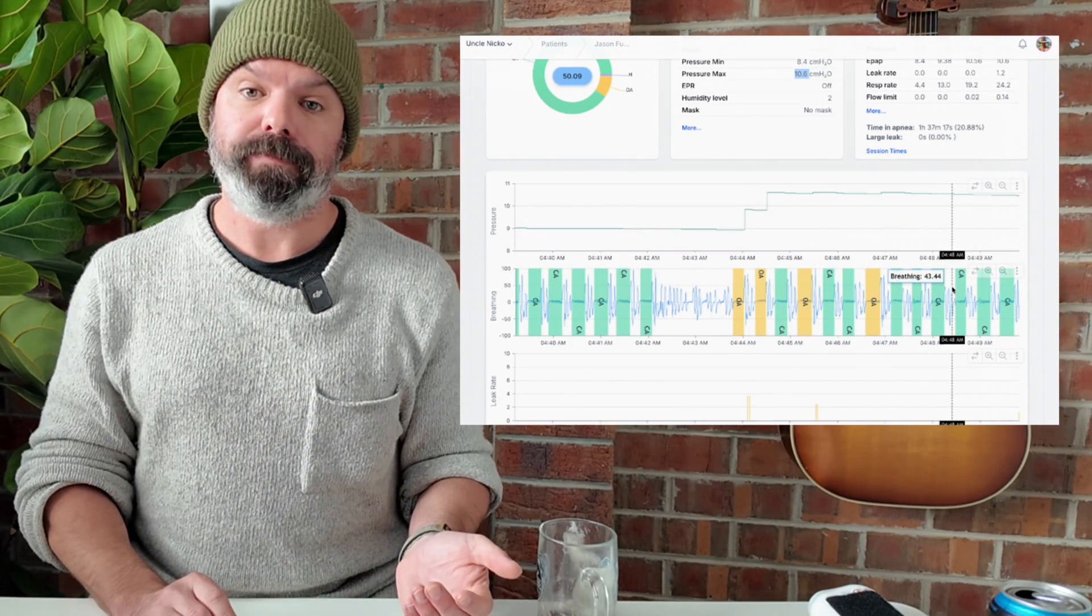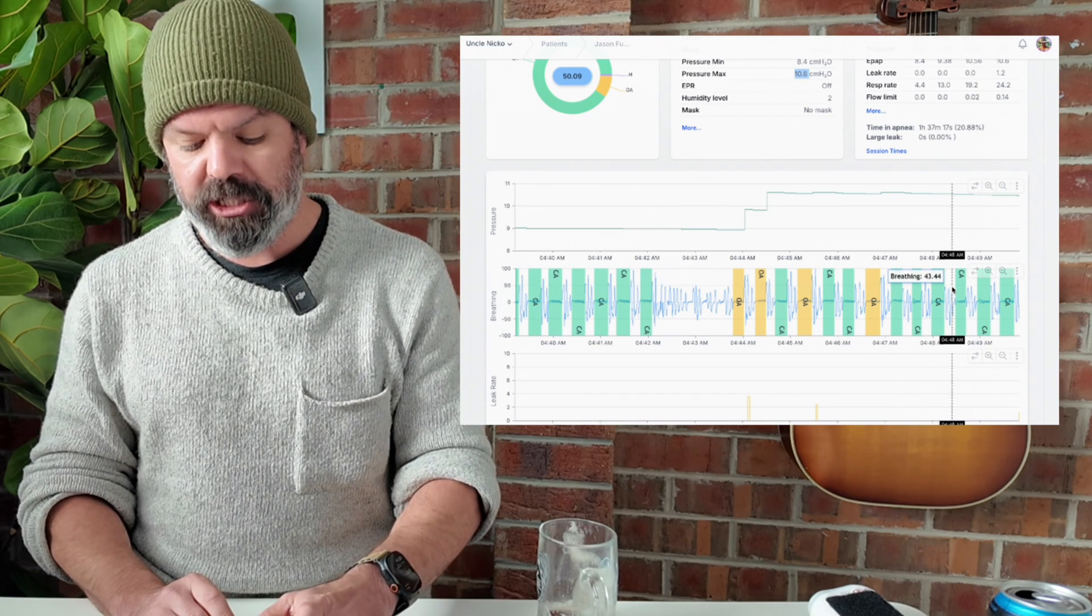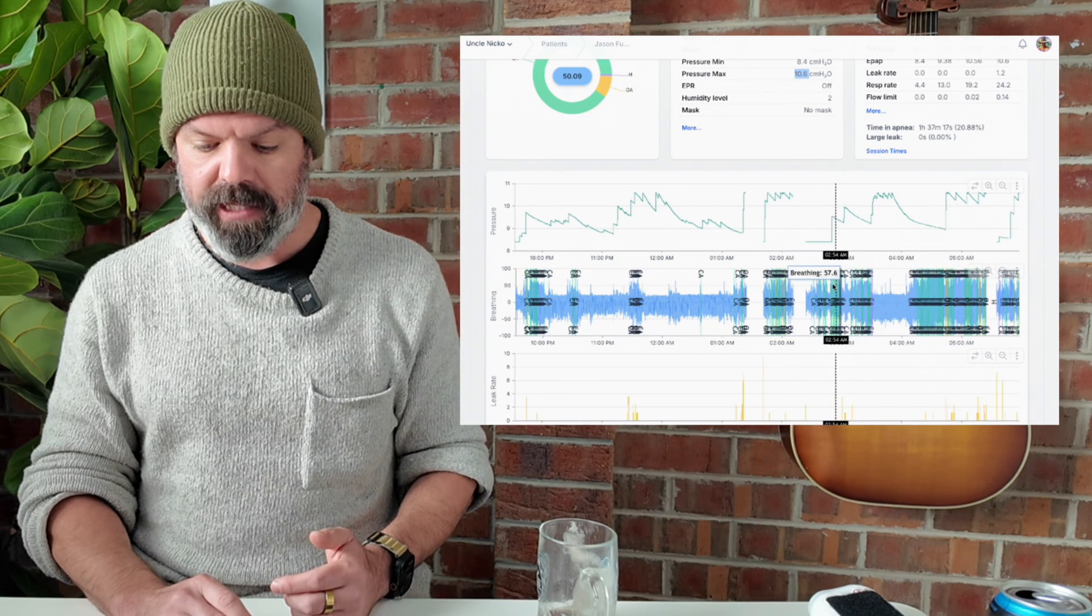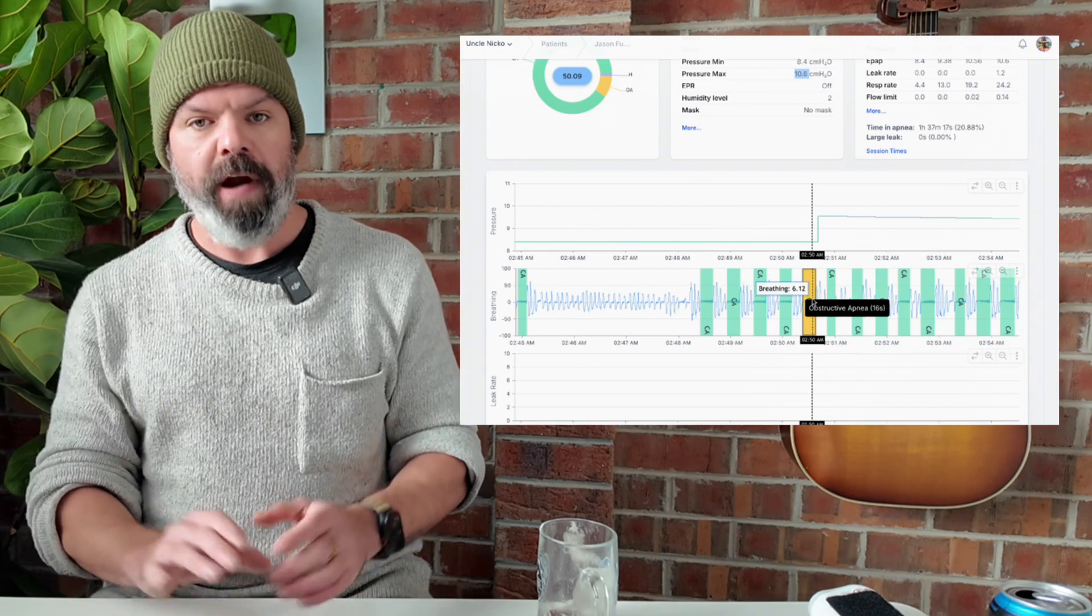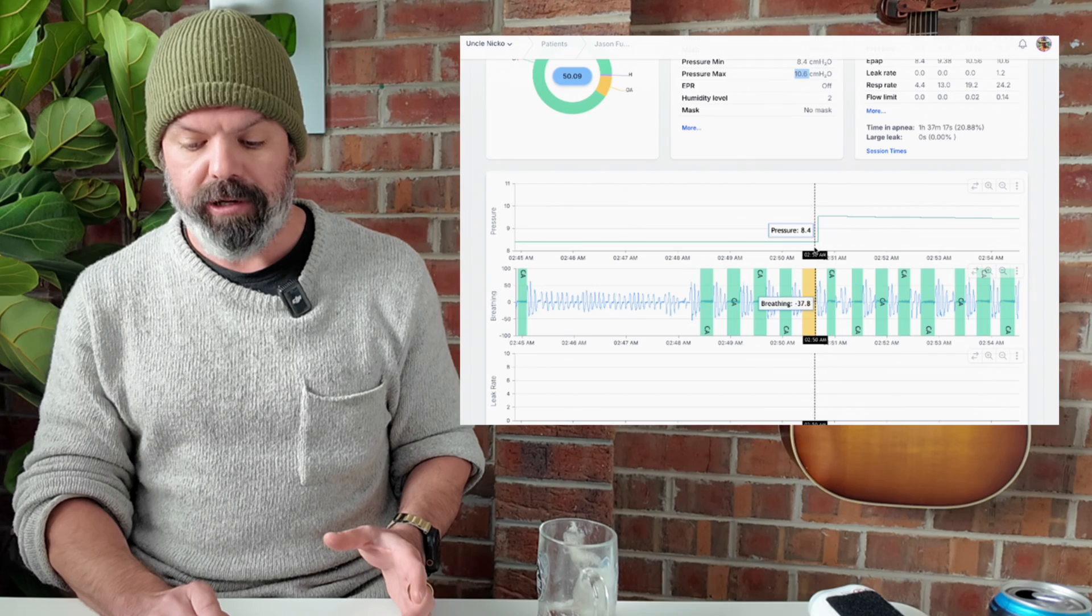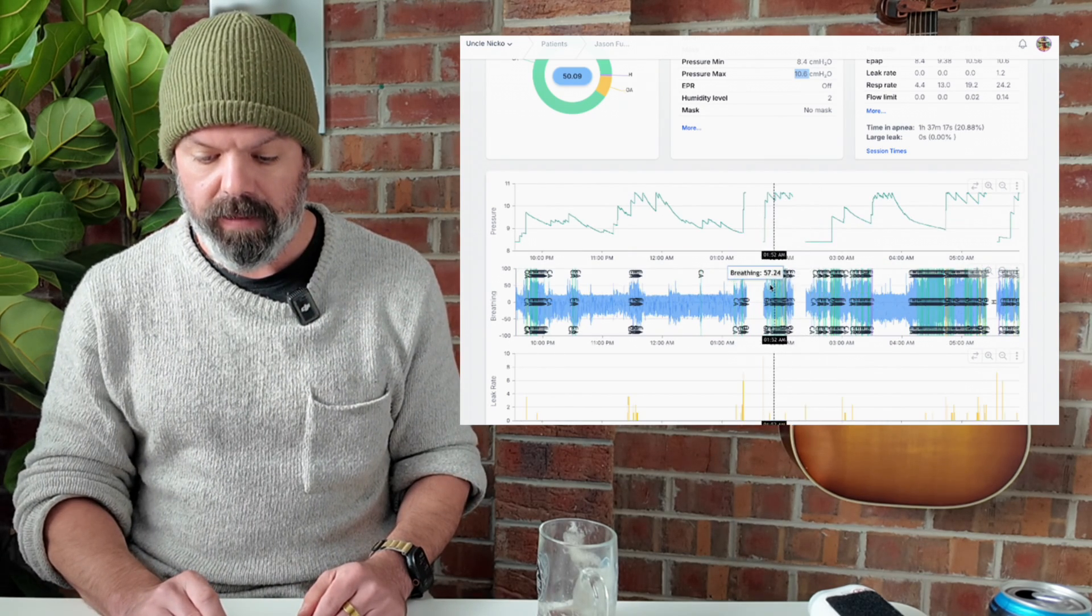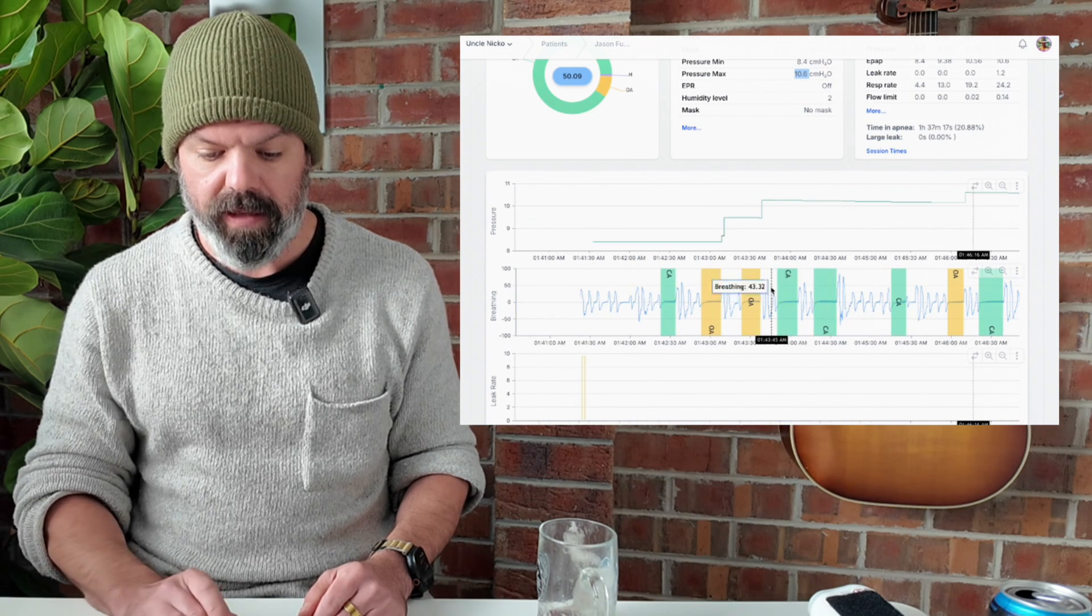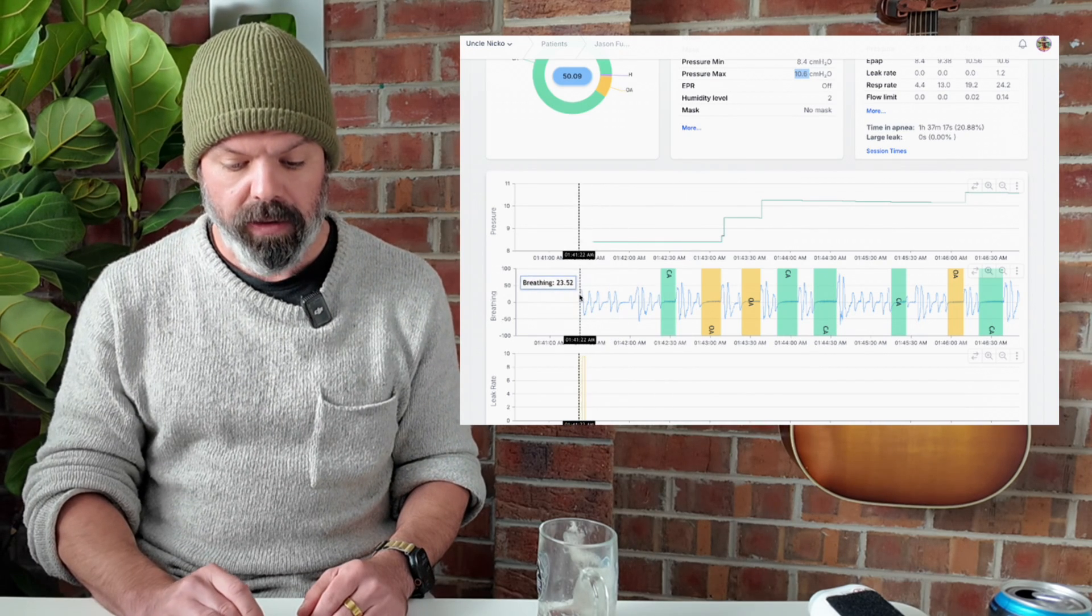The take home message, automatic pressure is not very accurate. And if we reset the charts, we just looked at this jump here. Now if we come across here, it'll be the same thing, another pressure jump. There we go. Another random OA flag amongst all these clear airway events, pressure jump. Reset the charts. Here's another one. Come over here, another one here. Same thing again. He hasn't even fallen asleep here. He just put his mask back on. It's only been one minute.